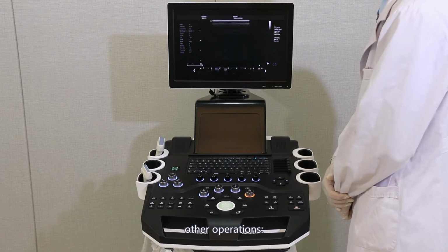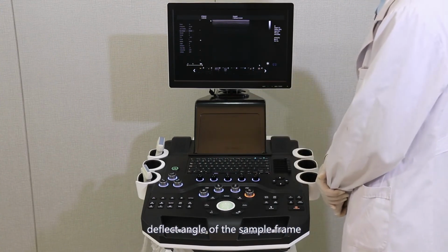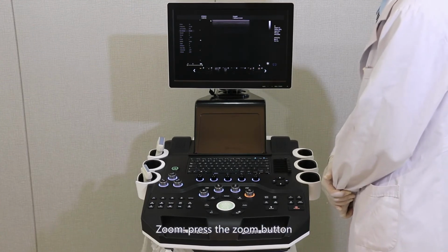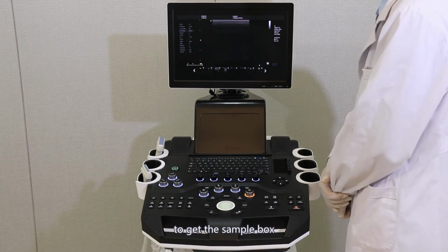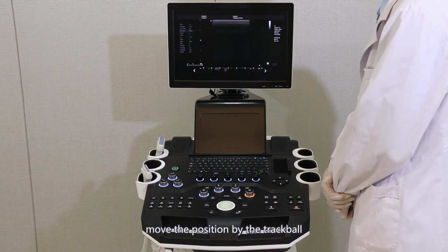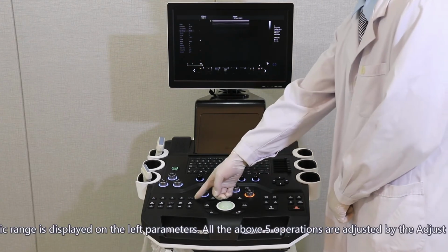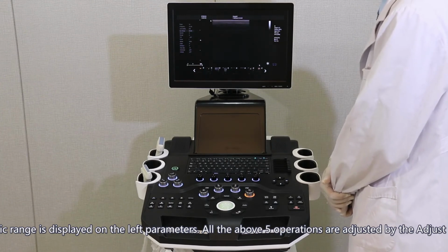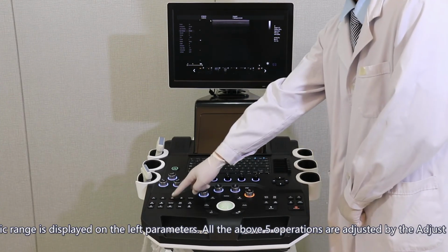Other operations. Deflection angle. Deflect the angle of the sample frame in the color Doppler mode. Zoom. Press the Zoom button on the control panel to get the sample box. Move the position by the trackball. Dynamic range. The dynamic range is displayed on the left parameters. All of the above 5 operations are adjusted by the Adjust button.